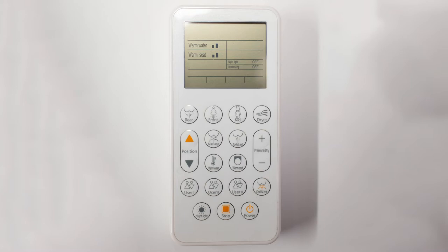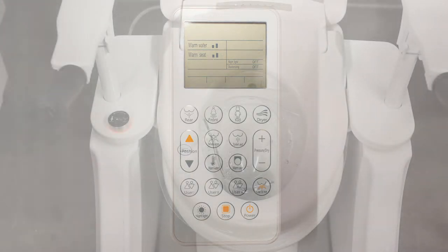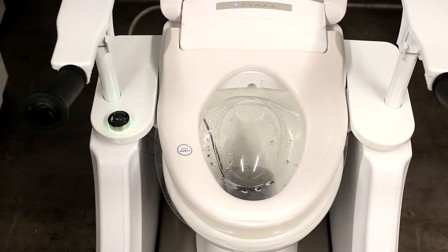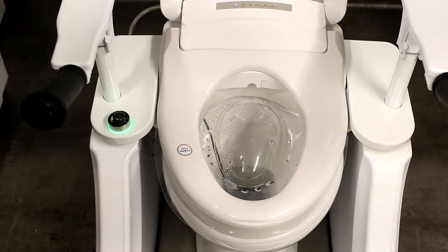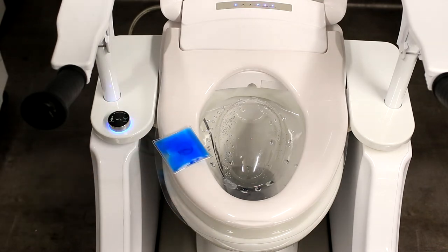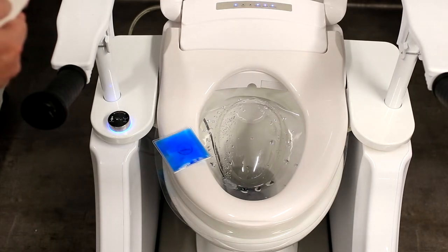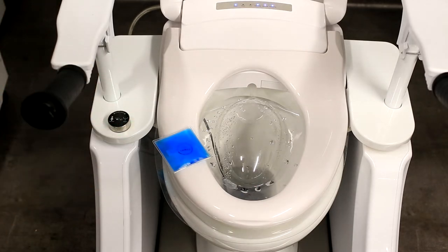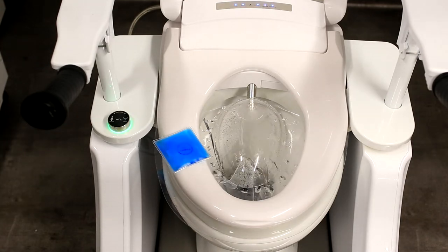Now back to Paul, who'll tell us more. Let's have a brief demonstration and see how this new wash dry toilet raiser works. I'm just going to put some weight on the seat so the toilet is ready to command. You'll hear a beep and see various different lights come on the back panel. If I start the toilet on a rear wash, the douche will come out and purge itself, so it's cleaning itself. It'll come out and start to wash.